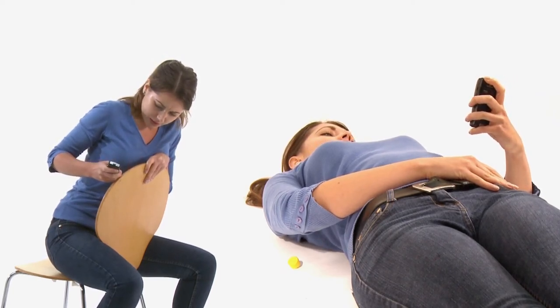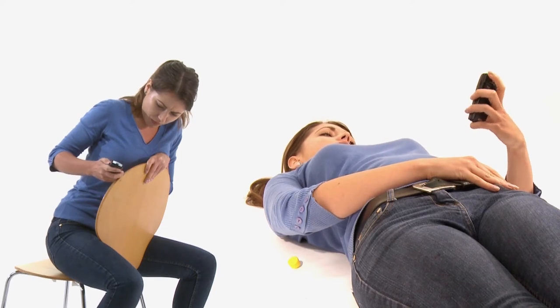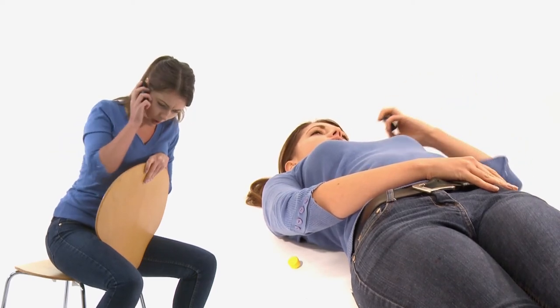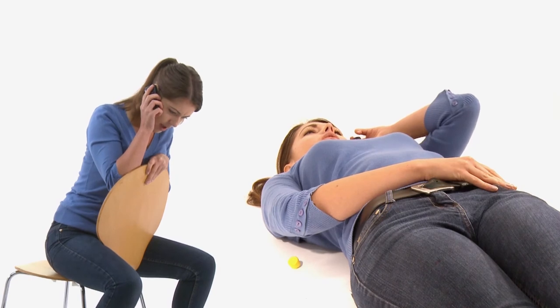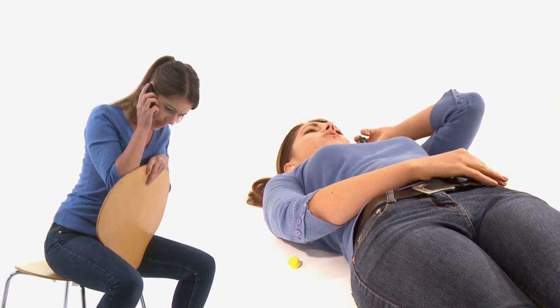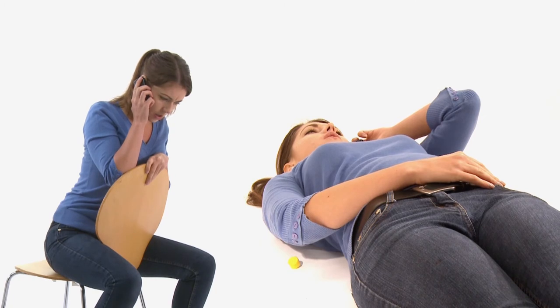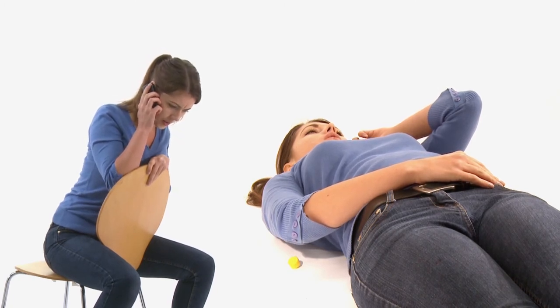Even if symptoms appear to be improving, lie down with your feet raised unless this makes you breathless. If you are breathless, you should sit up. Ask someone to stay with you until the ambulance arrives in case you feel unwell again.